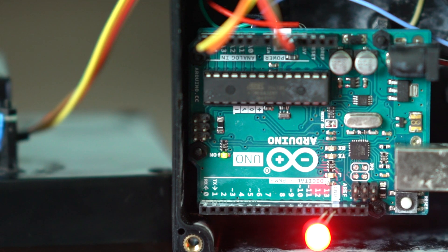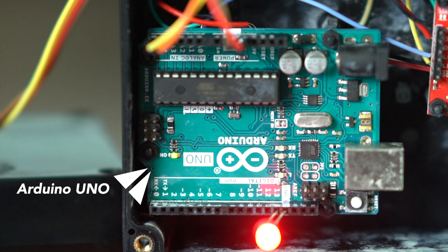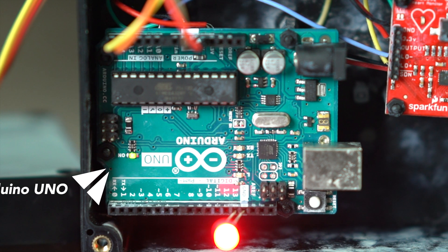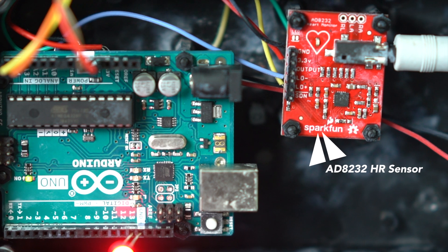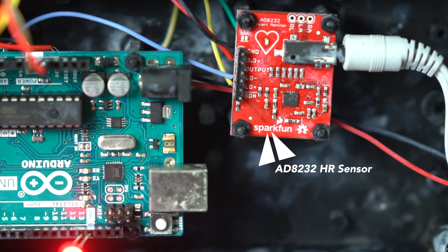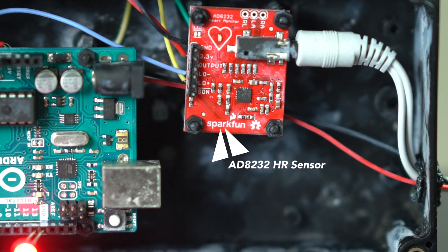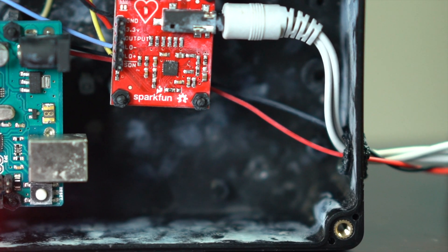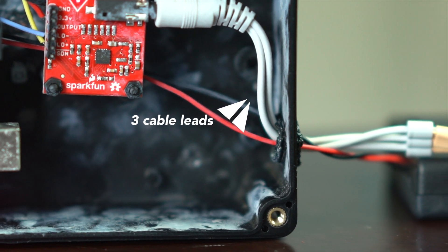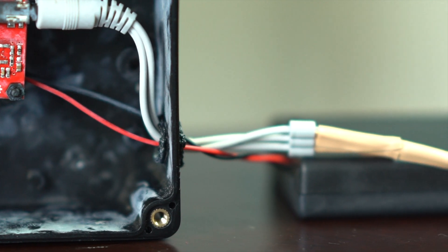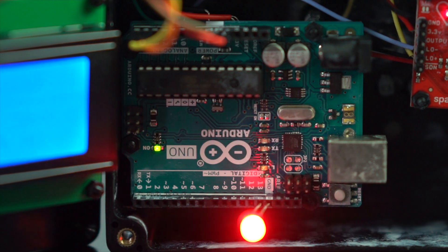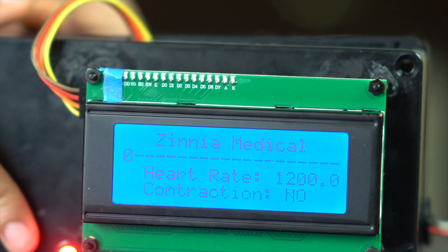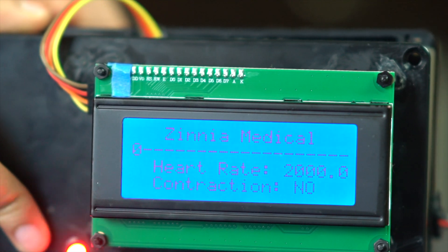So for the electronics of our system, we use the Arduino Uno microcontroller connected to the heart rate sensor AD8232. The electrical signals are picked up from the foam electrodes, which are transported through the leads and then go through the heart rate sensor directly into the Arduino Uno. Then the Arduino Uno is connected to the LCD display so we can display the analog readings from the sensor.